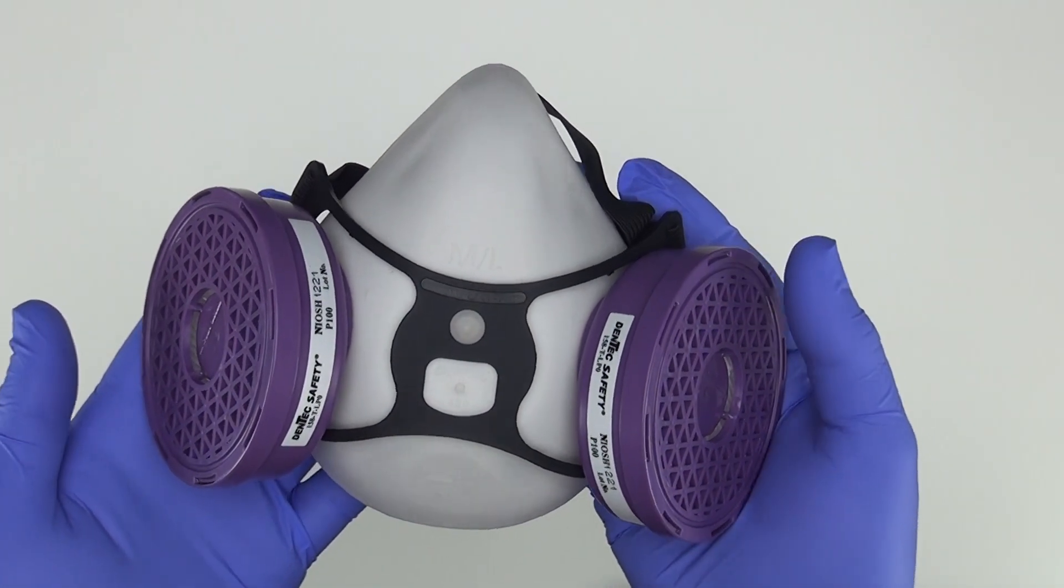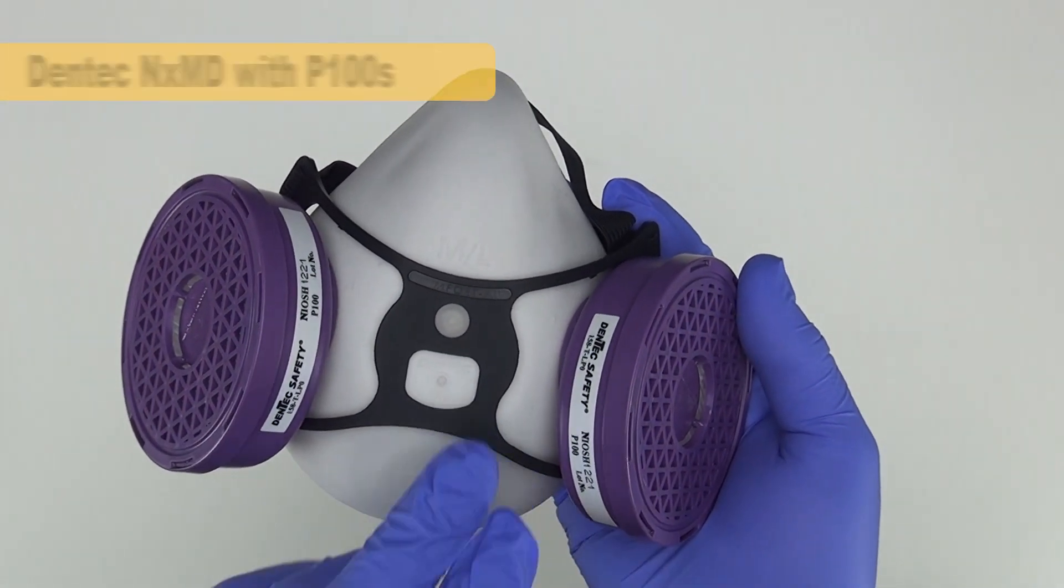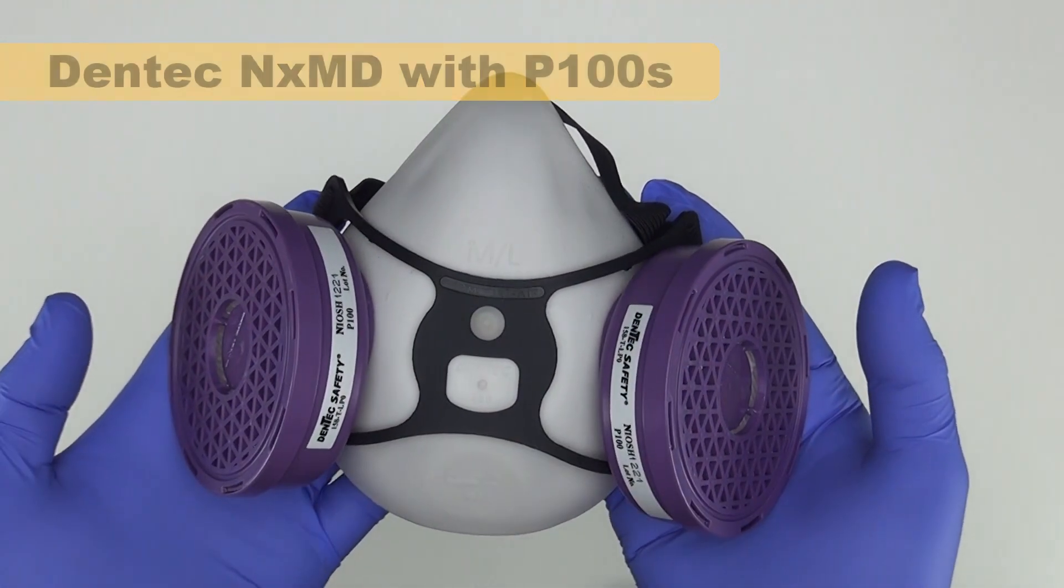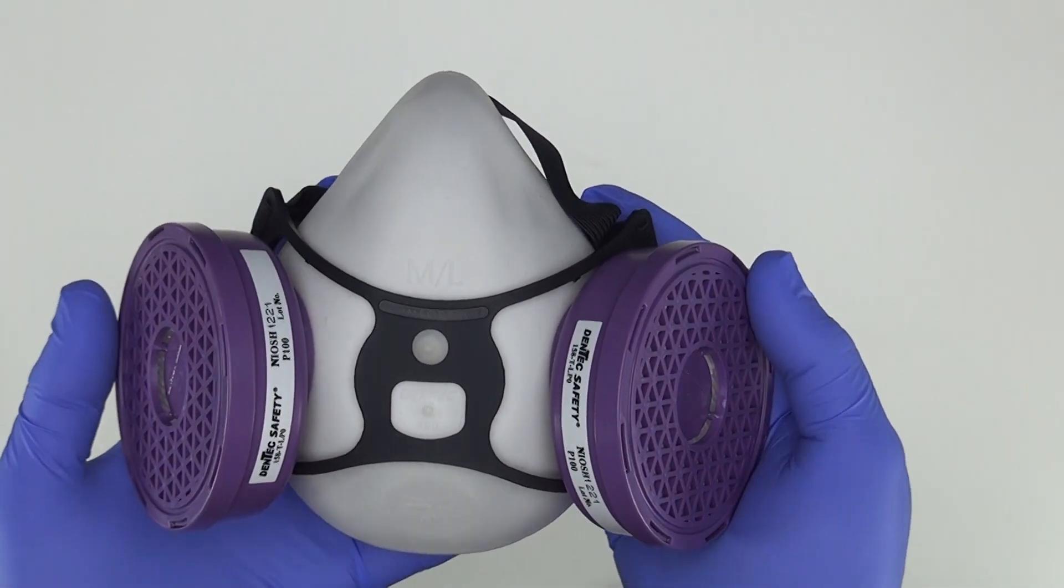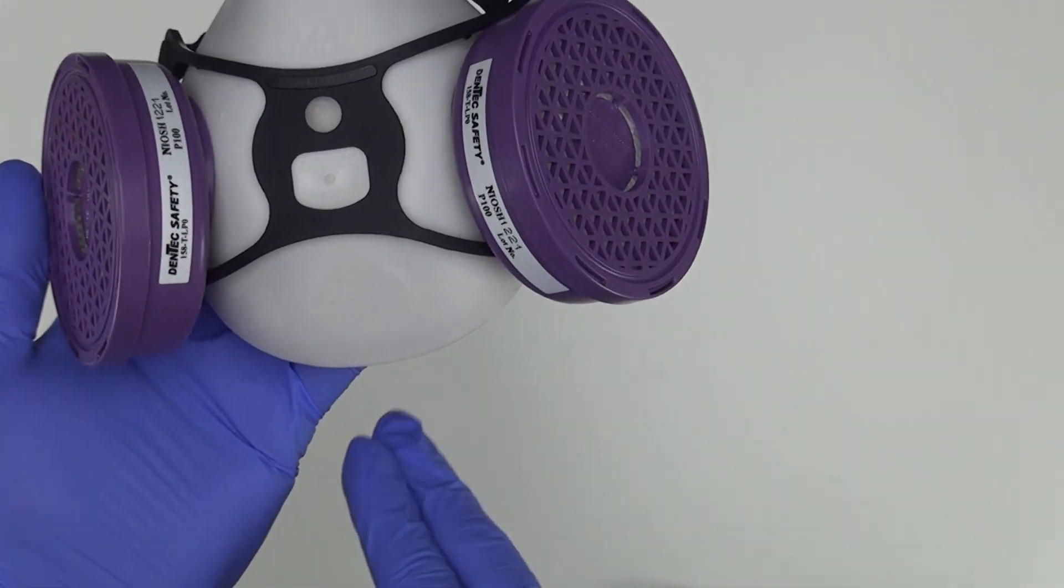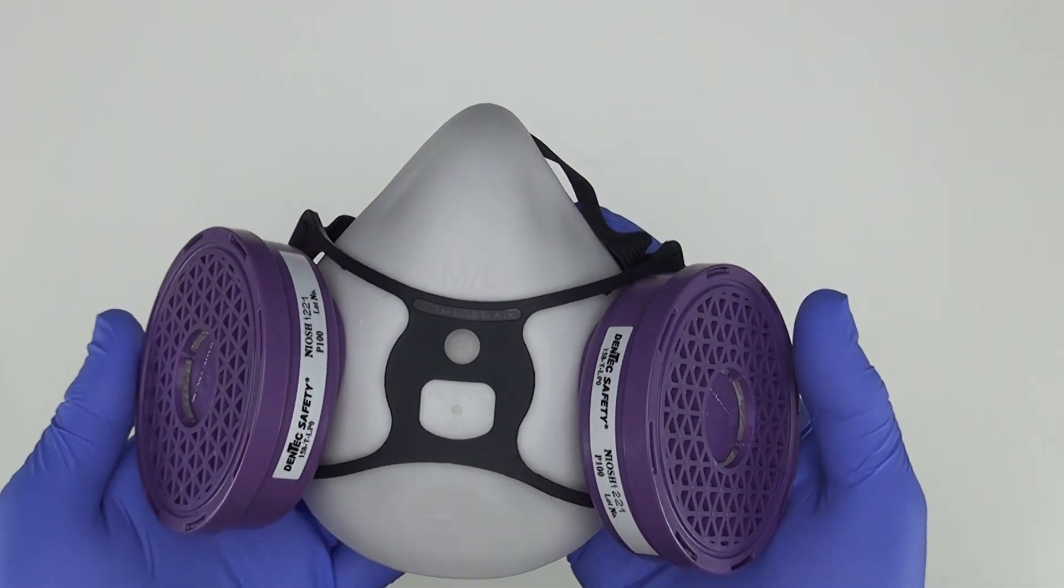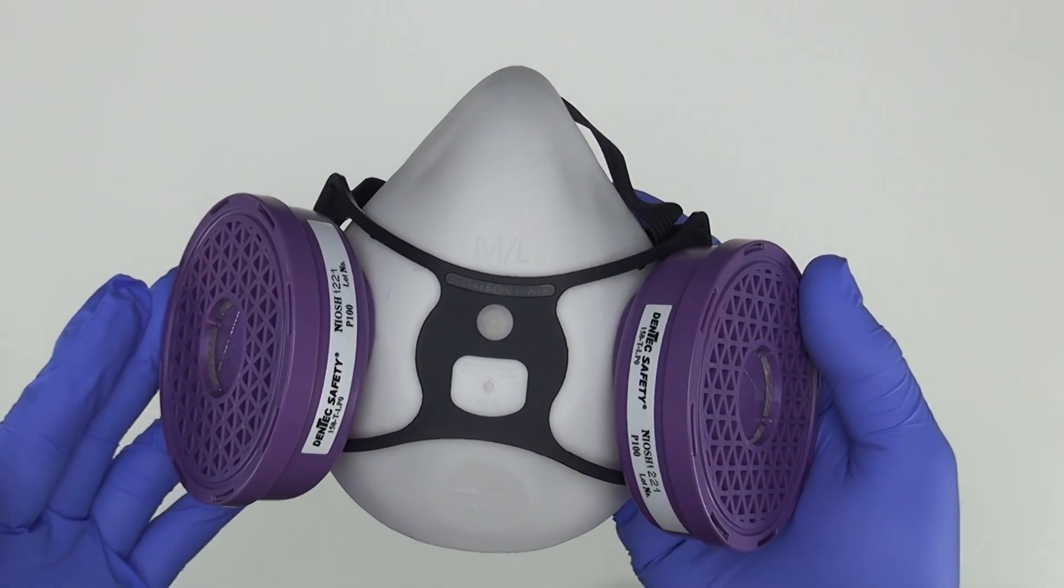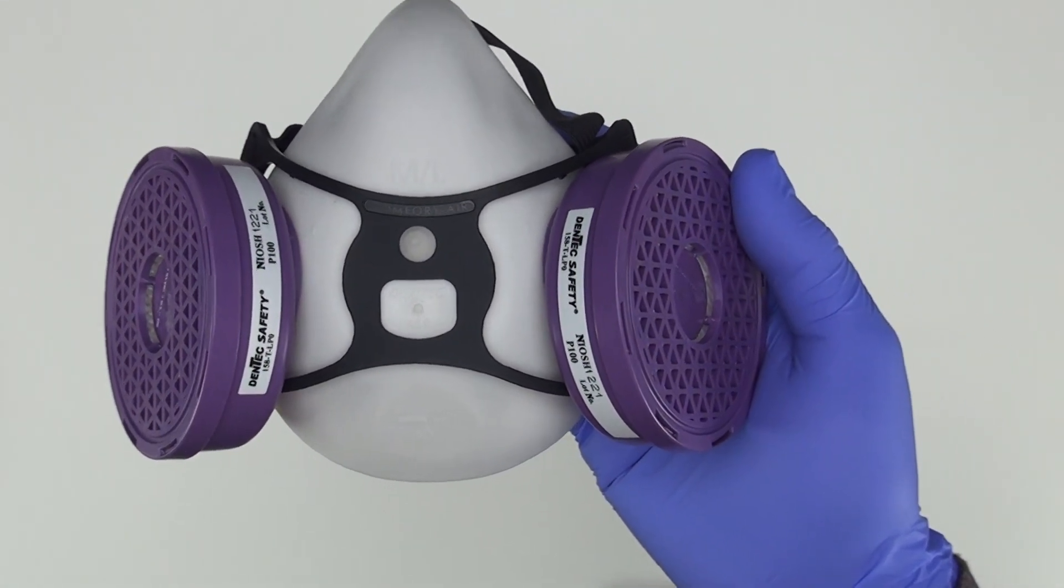Today I want to talk about why I trust this style of NXMD respirator and these P100 filters. This is a NIOSH approved source control respirator that filters air going in and coming out to protect yourself and others. But that's not the reason why I trust this particular mask. The reason why I trust this particular mask is simple.